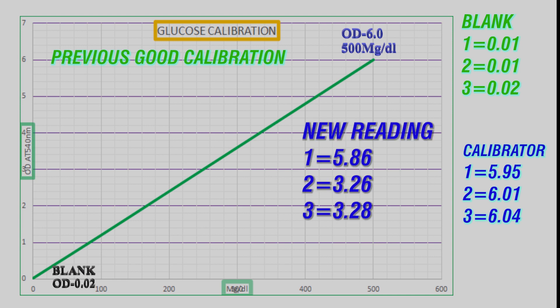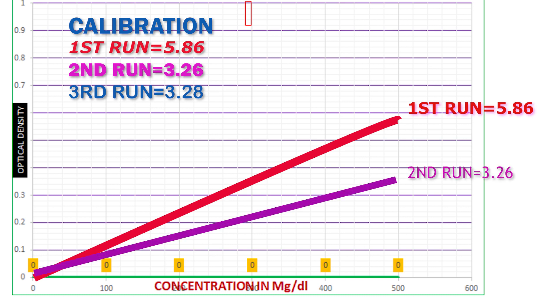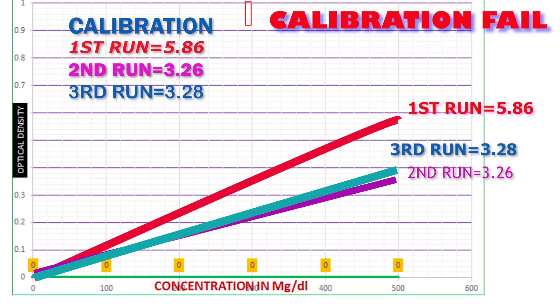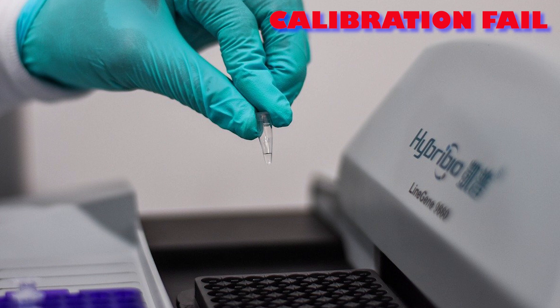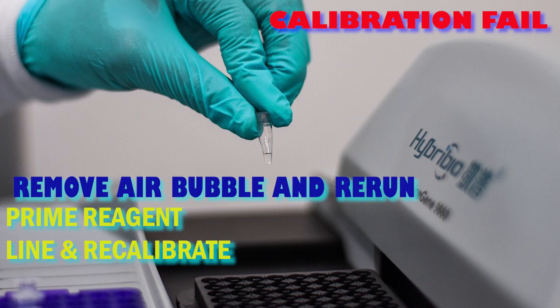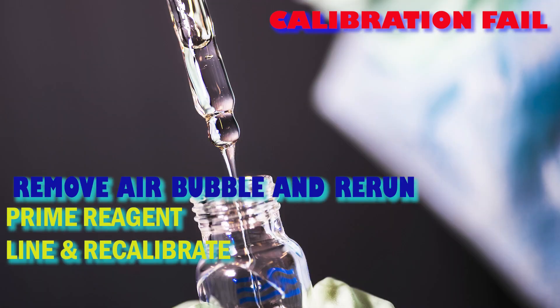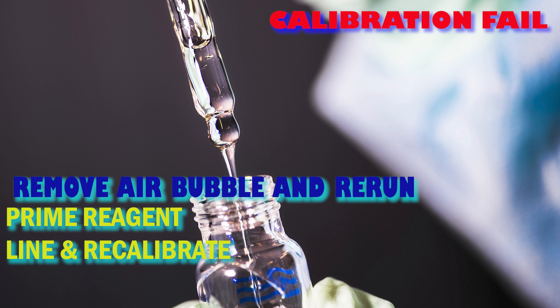For example, repeating the same sample three times and getting 60, 260, and 185 milligrams per dL — we cannot report because we don't know which is correct. A common and simple cause is an air bubble in the calibrator cup. When you pour from the calibrator bottle to the cup, a bubble may form, and the instrument can aspirate air instead of calibrator, giving a very low value. An air bubble in the reagent line can cause the same issue. We need to remove the bubble from the calibrator, prime the reagent line, and recalibrate.